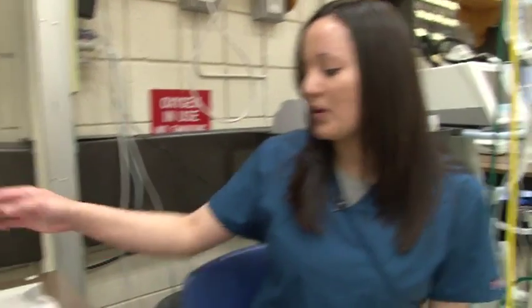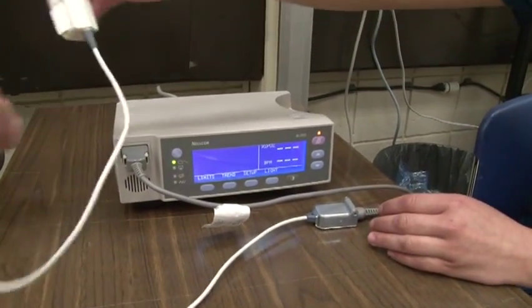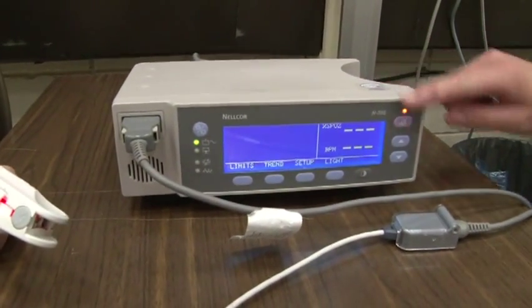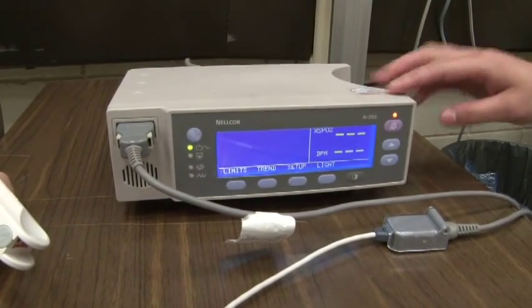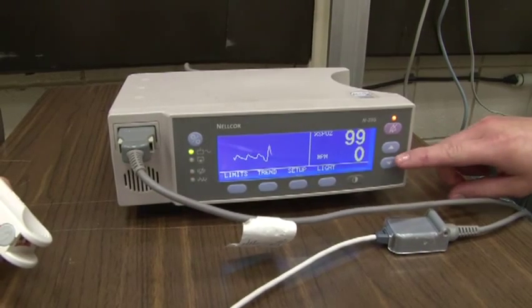There are two values we look at to determine if a patient needs oxygen therapy. The first value is the SpO2, which is the saturation of oxygen in the tissues. To look at the SpO2, we use the pulse oximeter, which is the finger probe that we put on the patient's finger. The pulse oximeter displays two values and a waveform: the SpO2 and the heart rate.